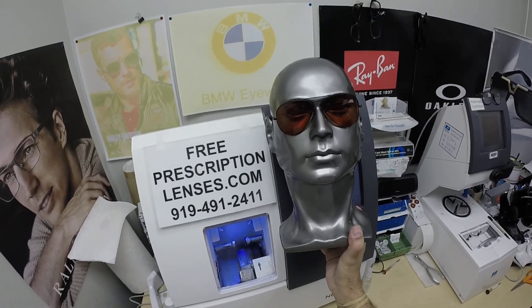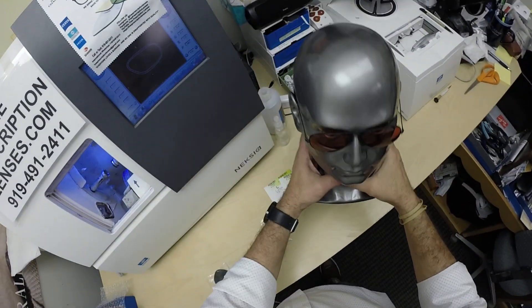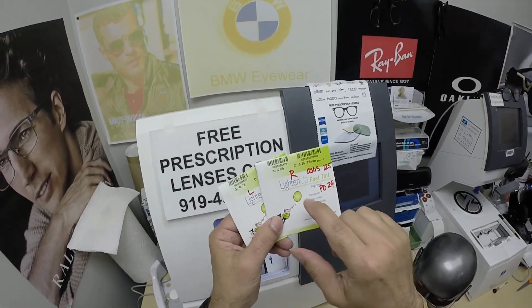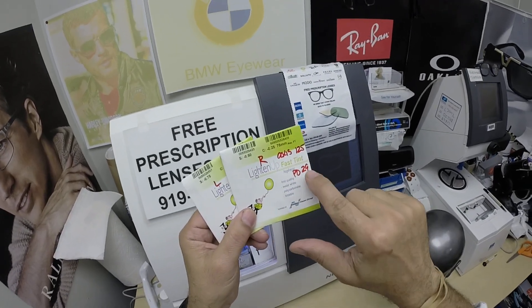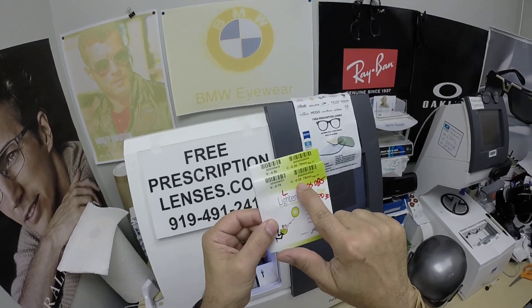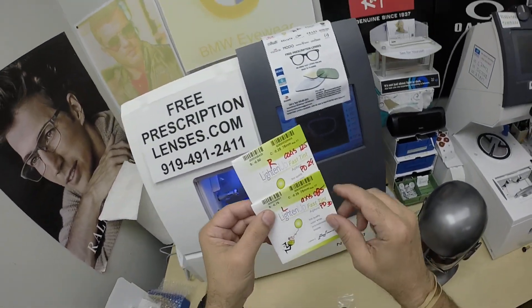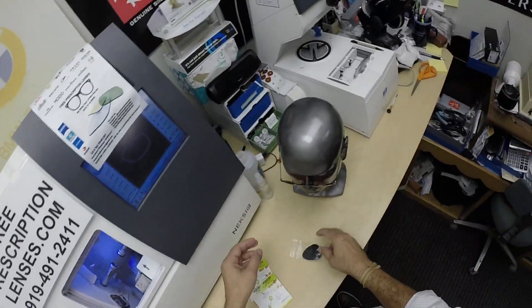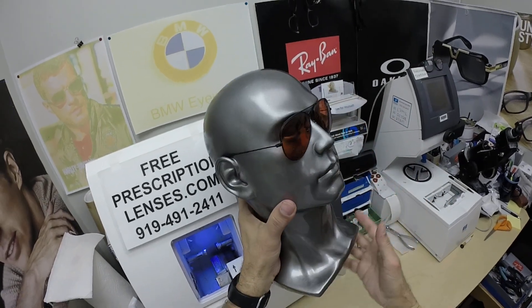He's a great lens stylist and frame stylist — he'll tell you what looks good and what will work with your prescription. For Emma, I have the right lens marked with the axis: minus 50, minus a quarter at 125, PD of 29. Her left eye prescription: minus 75, minus a quarter at 85, PD of 30. I marked the paperwork. These are aspheric lenses.